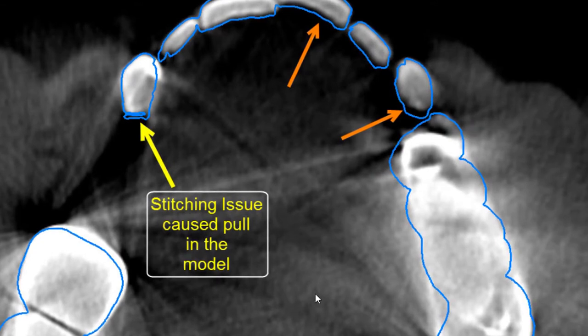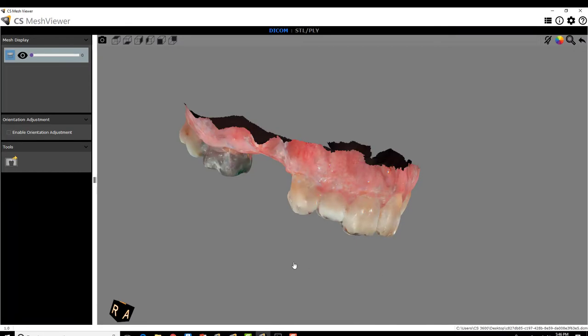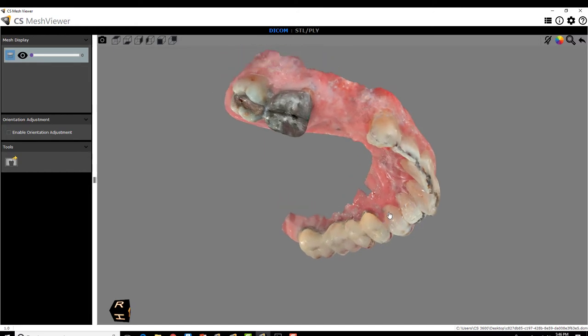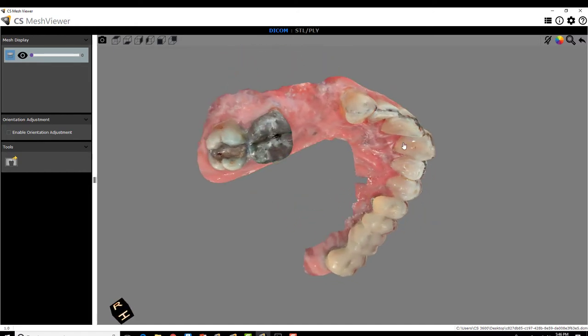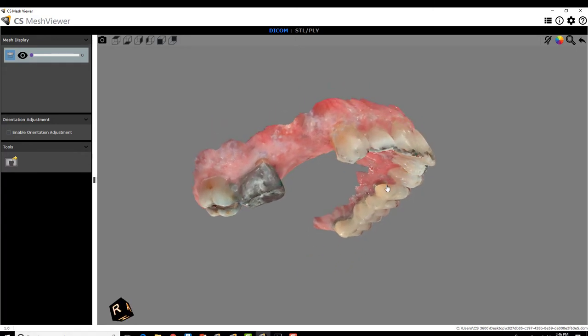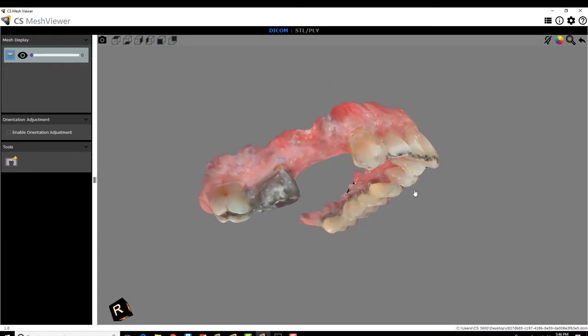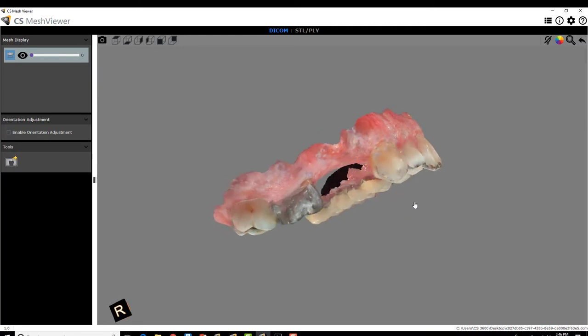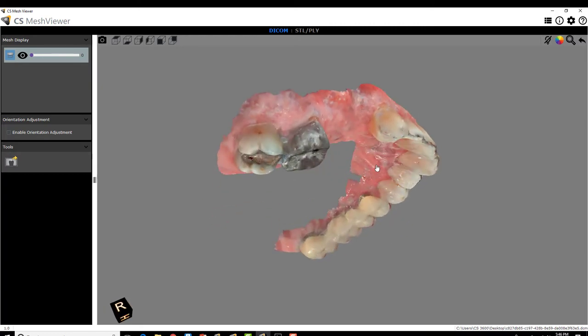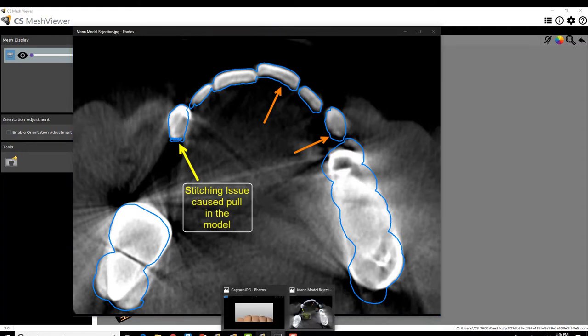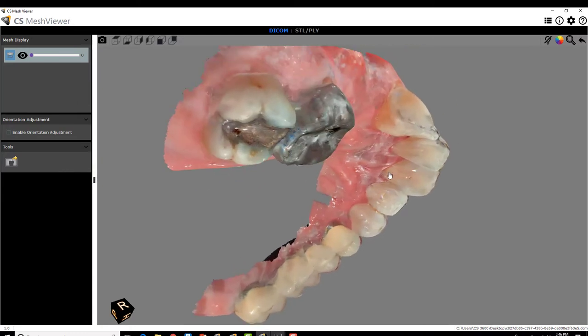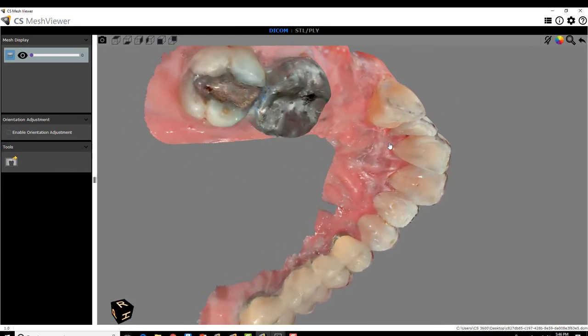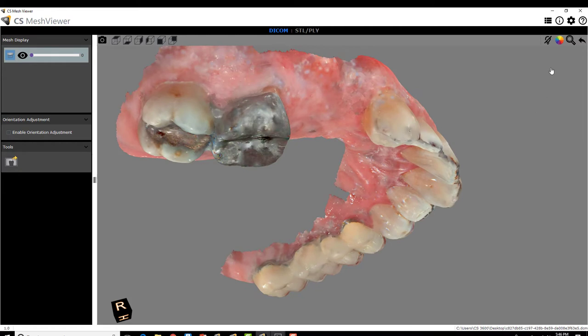And when we look at the actual scan, we're going to look at the actual DICOM model in the true color aspect in the CareStream software. This is that same case. It's actually difficult to see where those errors are. The arrows were pointing right here on the distal. And when I go back to my scan, you really can't see what the errors are. So it's really important to use either the monochrome or turn on the light switch for the contrast view in full color.